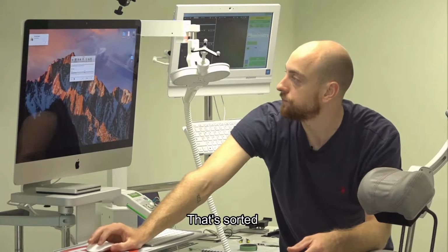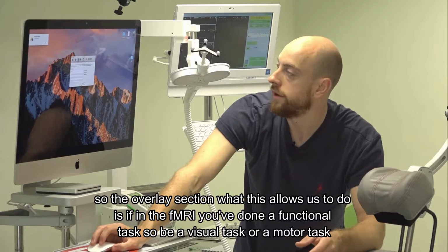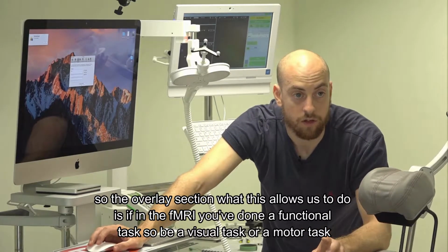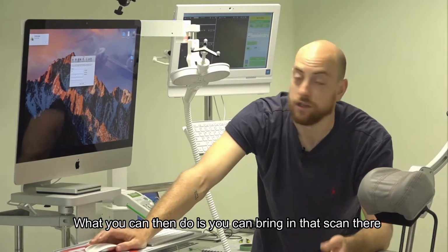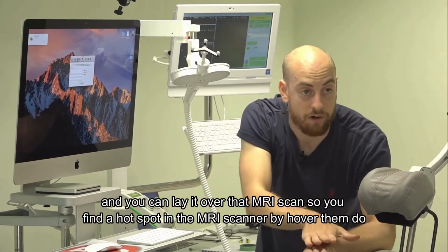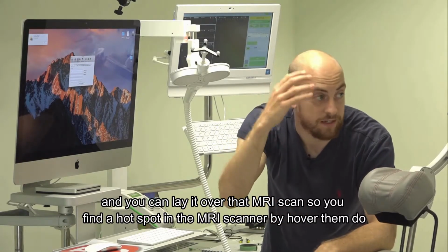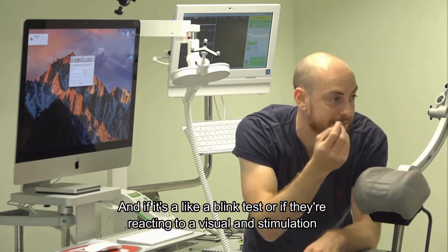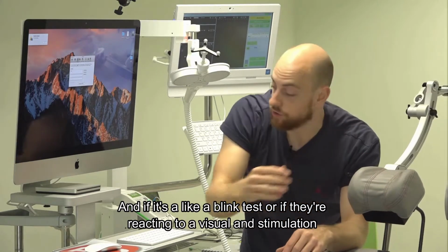That's that sorted. Now the overlays section. What this allows us to do is, if in the fMRI you've done a functional task, be it a visual task or a motor task, you can bring in that scan and lay it over the MRI scan. You'd find a hotspot in the MRI scanner by having them do a blink test, or react to a visual stimulation.